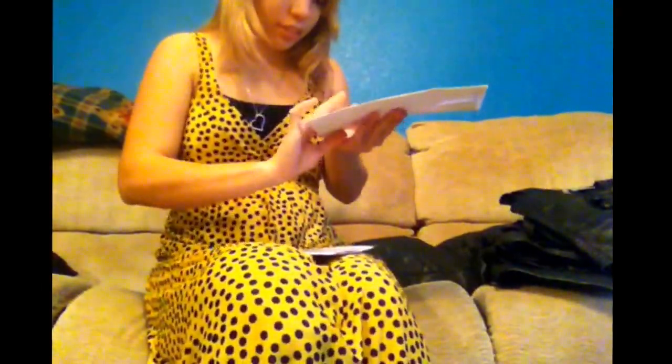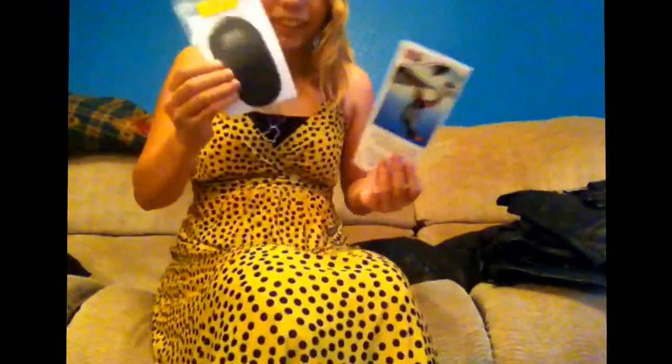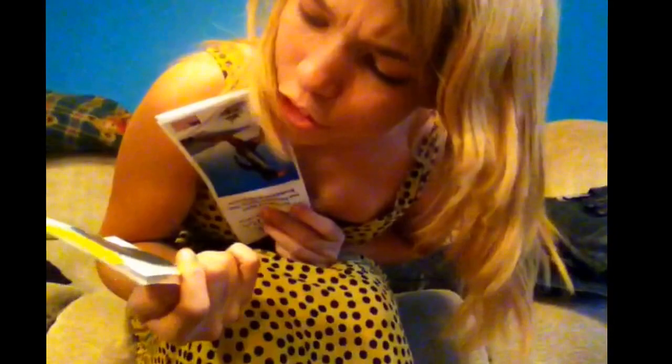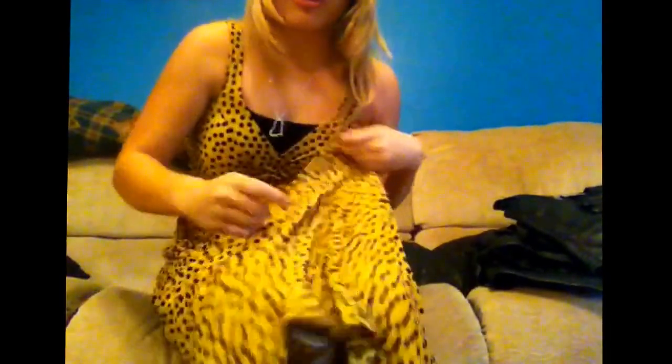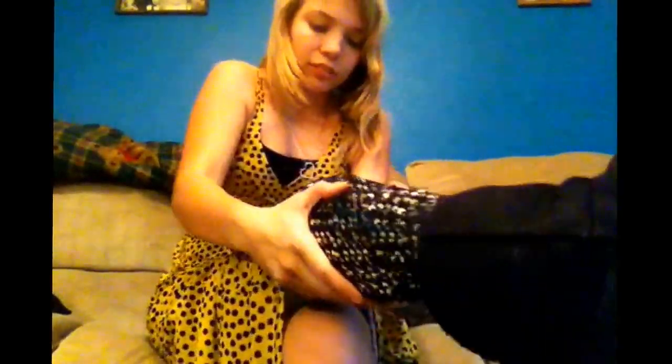Hey you guys, I just got mail from Christina. I don't want to show my address. She was doing a giveaway and I got the Glideware piece for my leg. This is probably gonna be the last video you'll ever see of my stump — you could say thank you to the devotees out there. My sleeve keeps falling down but here we go.